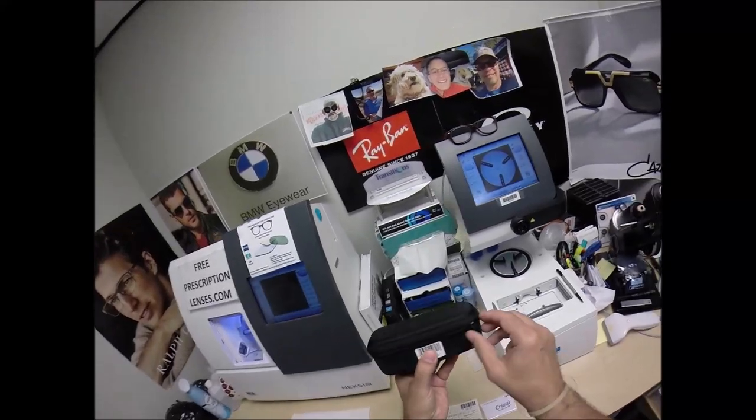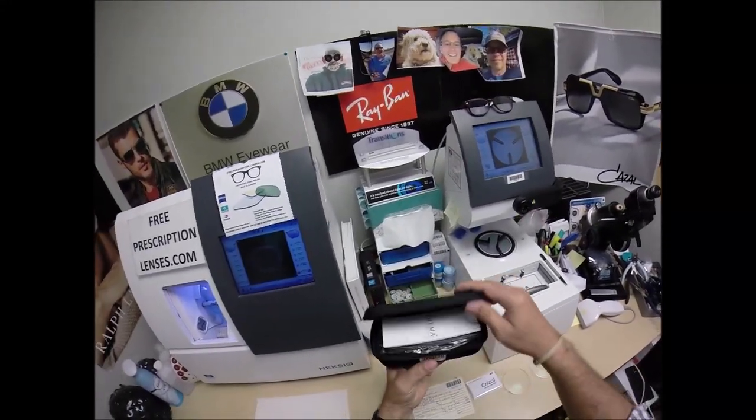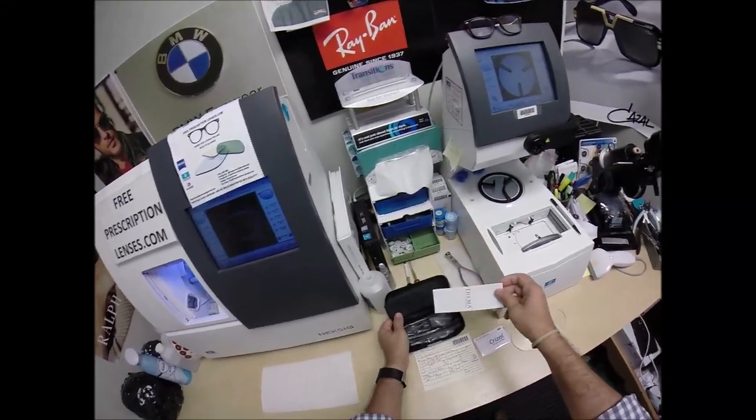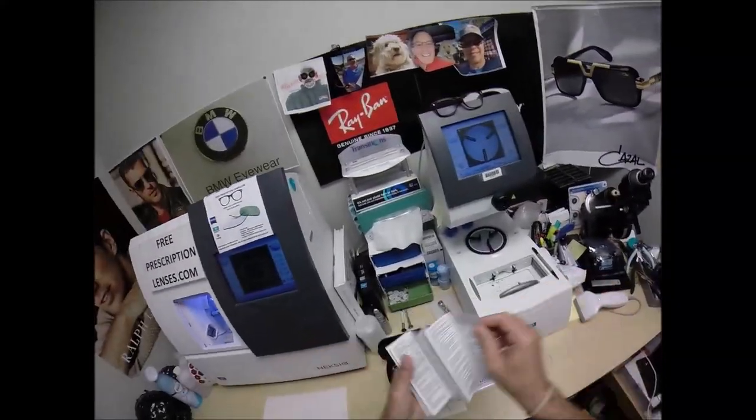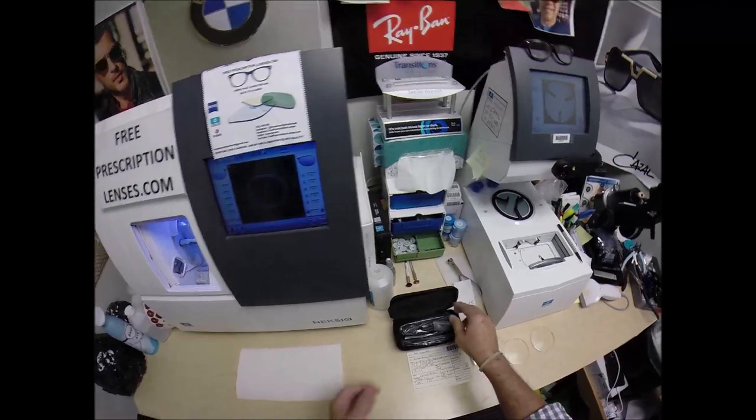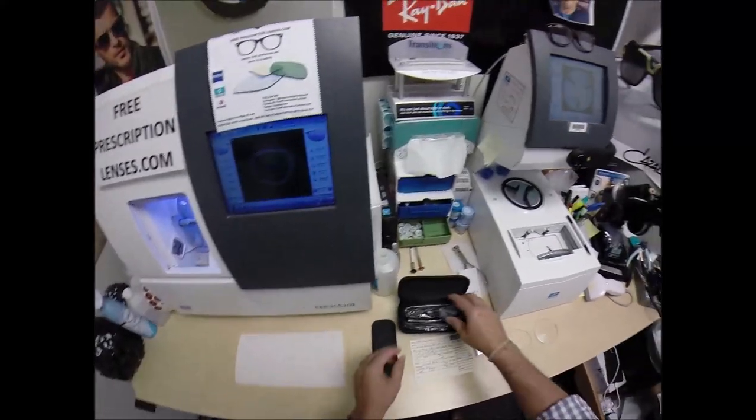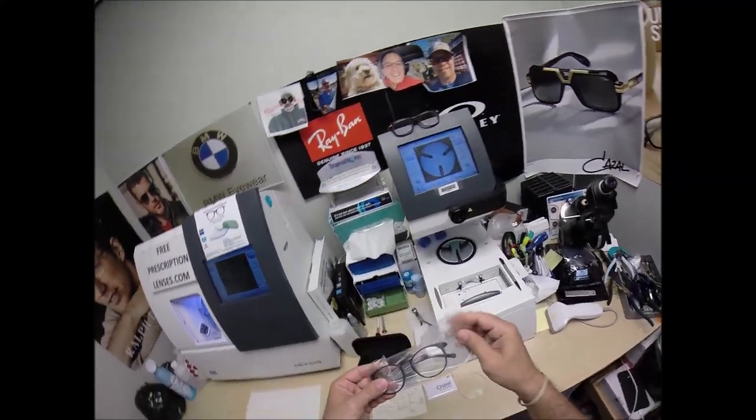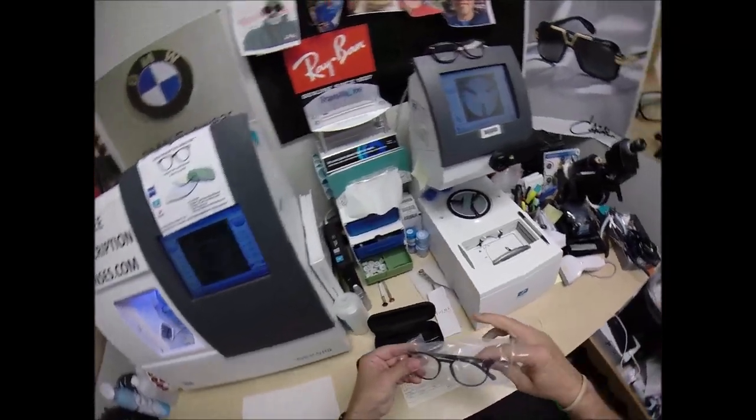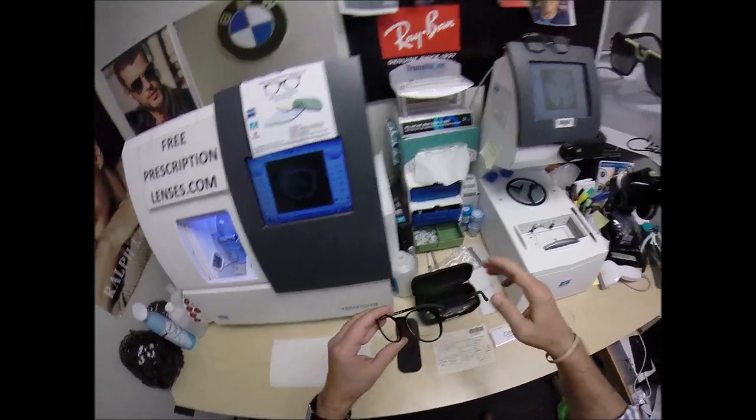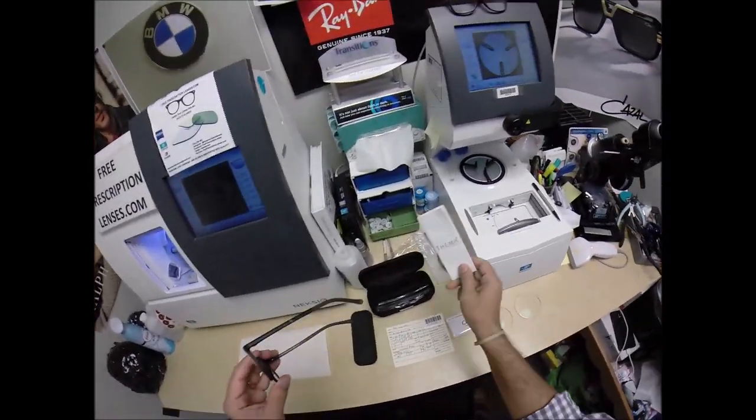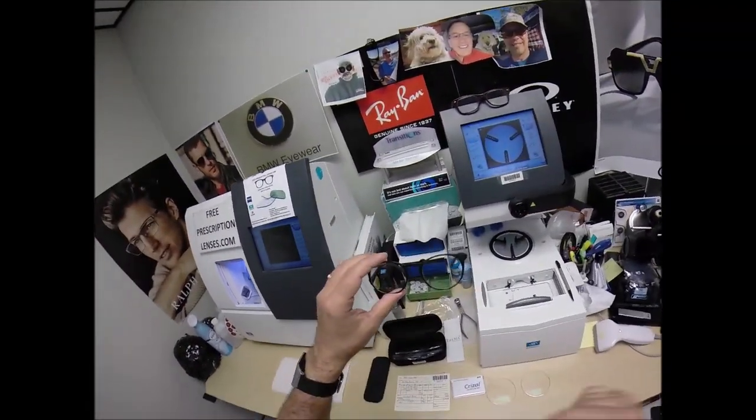It comes in a larger than average case because, and of course, right on top, you get junk mail in every possible language imaginable because you need that in your life right now. I'll get back to you on that. But this is the frame. Let me take it out of the packaging as it comes. By the way, now is a good time to mention, please recycle all the contents that come in here. There's a lot of plastic and paper that comes in here, so just don't throw it in your landfill.